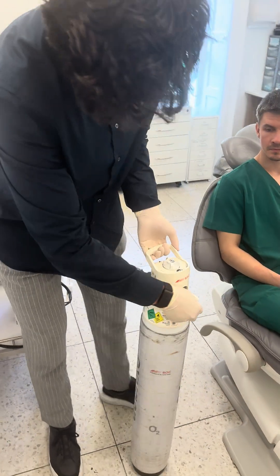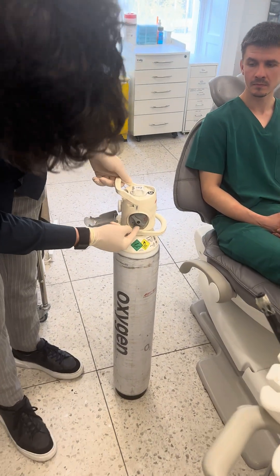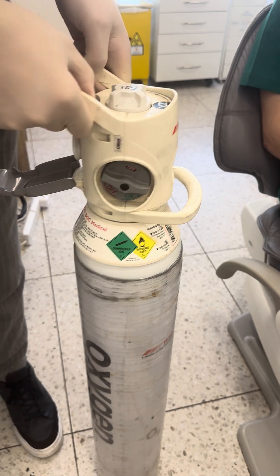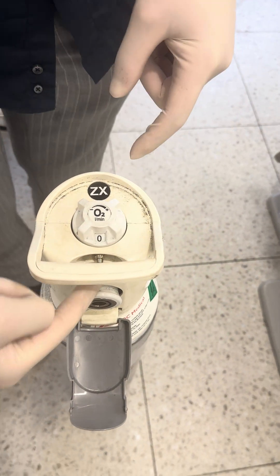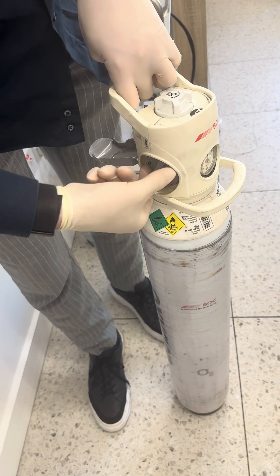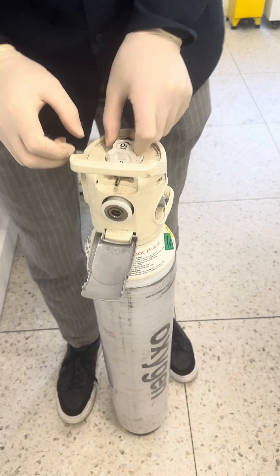The first thing you have to do — you see here there's an off and on. The default position is going to be off. Even though we've turned it off here and it's at zero, it will still leak unless it's turned off on the side as well. So the first thing you do is turn it on.